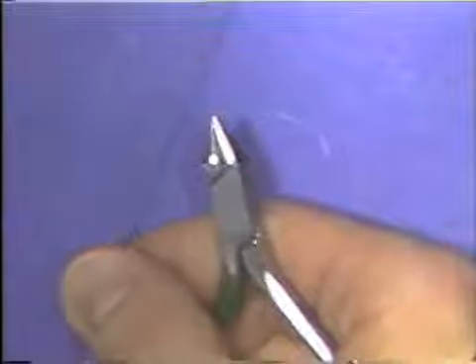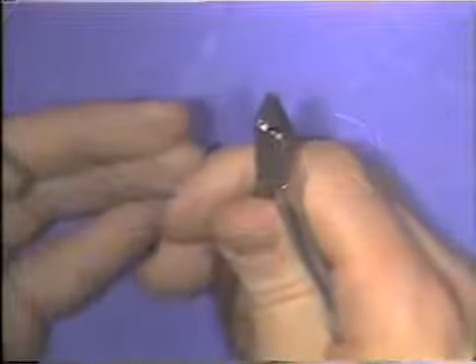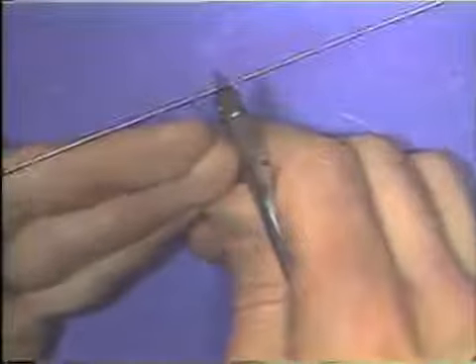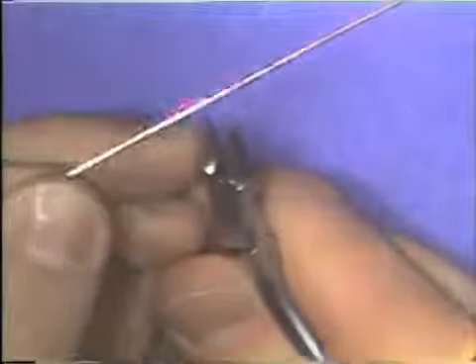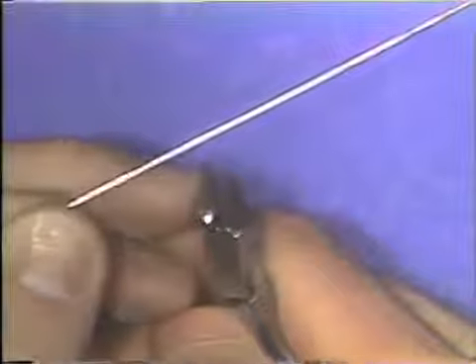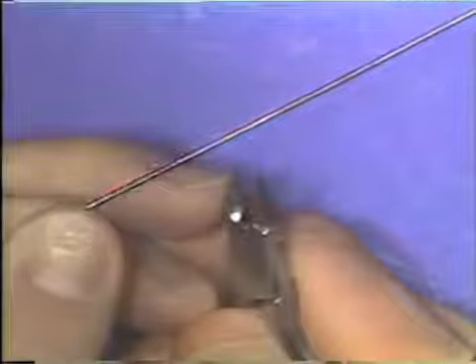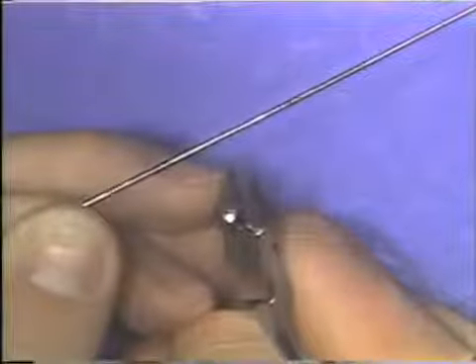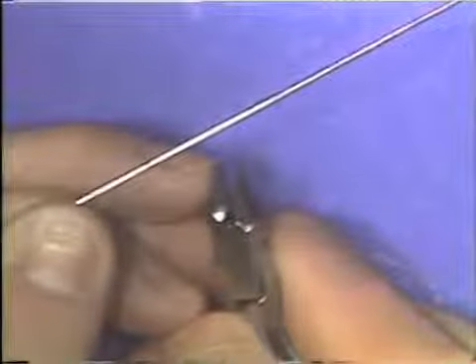To bend a wire with the 139 plier, you hold the plier in your right hand, if you are right-handed, with the round beak away from your chest. You place the wire in the beaks of the plier. It is important when you place the wire in the beaks that the diameter of the wire you're bending is smaller than the diameter of the region of the round beak that is grasping the wire. A plier might be damaged if a large wire is bent at the fine tips of the plier beaks.